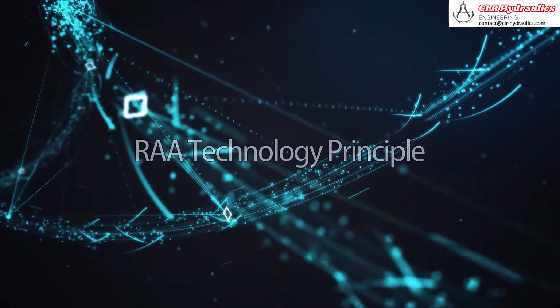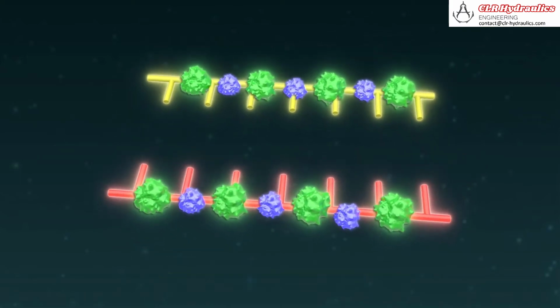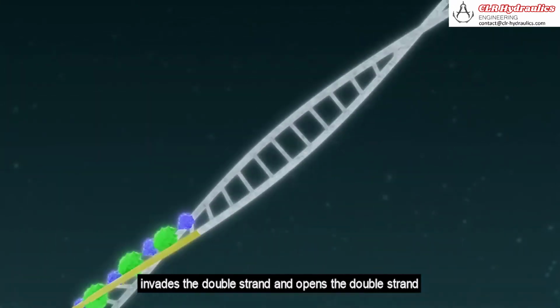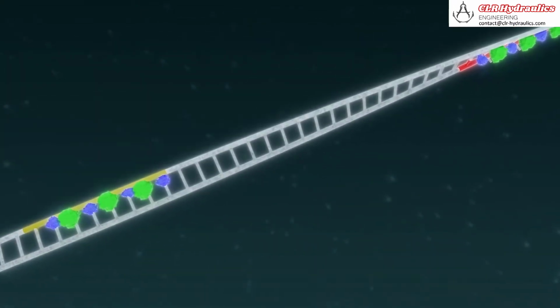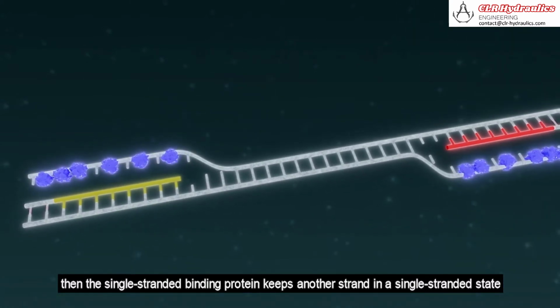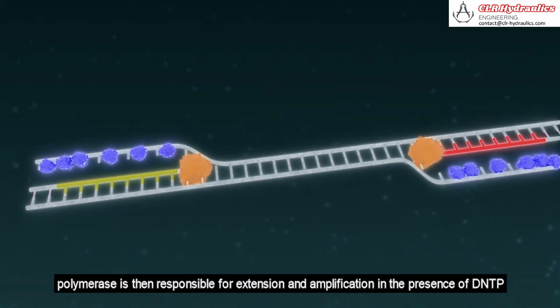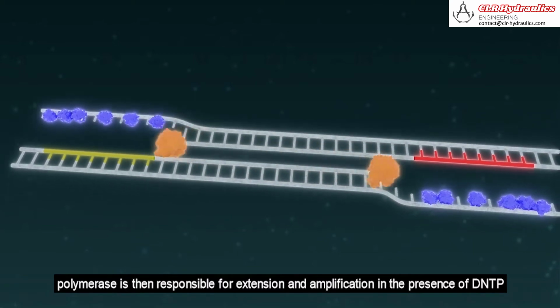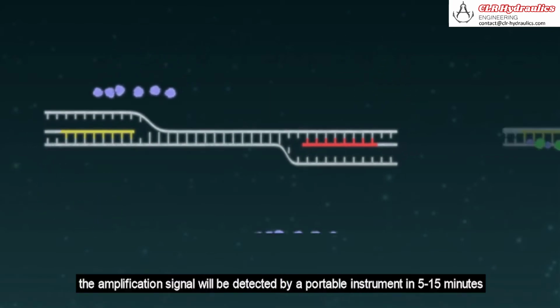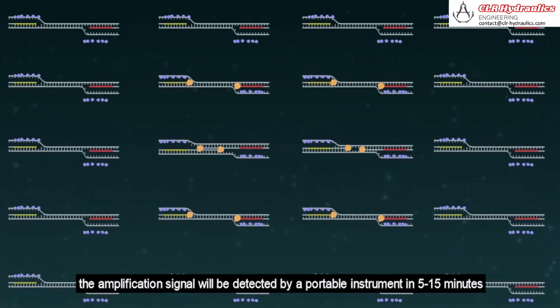The principle of RAA is as follows. Recombinase forms a complex with a primer, scans the double strands, invades the double strand, and opens the double strand. Then the single-stranded binding protein keeps the other strand in a single-stranded state. Polymerase is then responsible for extension and amplification in the presence of dNTP. Repeating this process, the amplification signal will be detected by a portable instrument in 5 to 15 minutes.